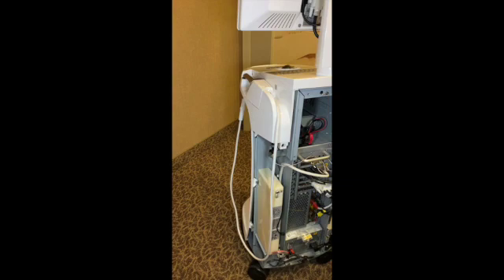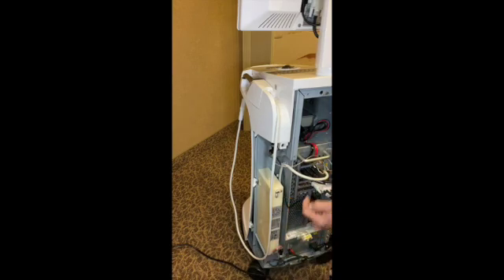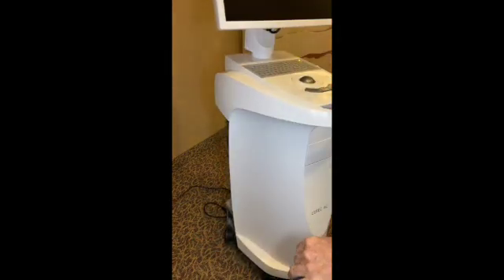Now I have one other thing — a SATA cable. Lower it down and push that in its place. Everything's hooked up. All I've got to do is bring the electrical supply over here and hook up the backup battery. I'll take this back out when I go to put the back panel on because you have to put this in after the back panel is in there. We can also hook up one of the lower fans here. Here's what you should see — a yellow light. Let's click the button and see if it boots up. It's a good sign when the light comes on the monitor. So we've updated the RAM memory — everything should start coming up on screen.